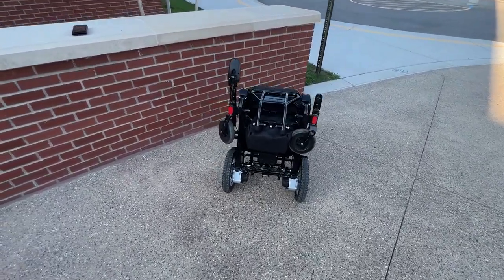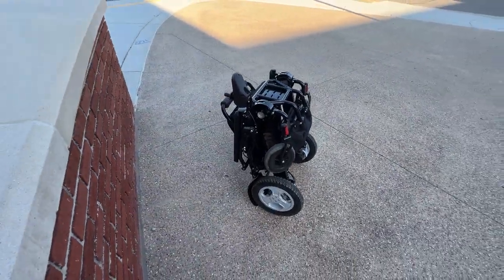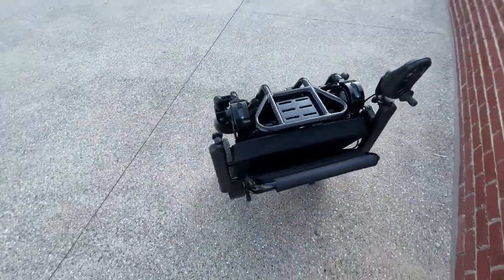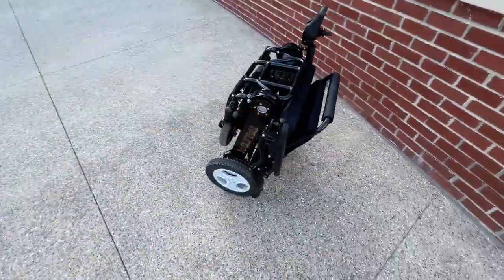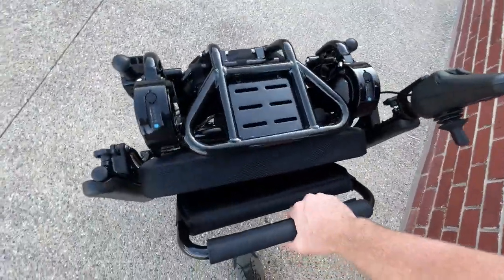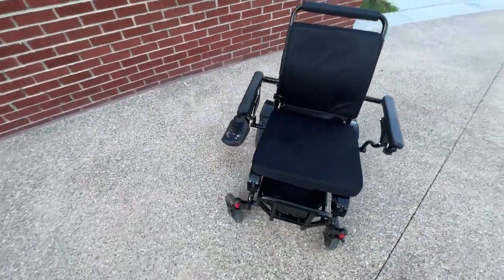Hello, this is Paul from quickenmobile.com and in this video we are going to answer some very important questions for people looking to make purchasing decisions for one of our lightweight foldable power wheelchairs, or if people are just evaluating lightweight foldable power wheelchairs in general - what are some of the gimmicks to avoid?